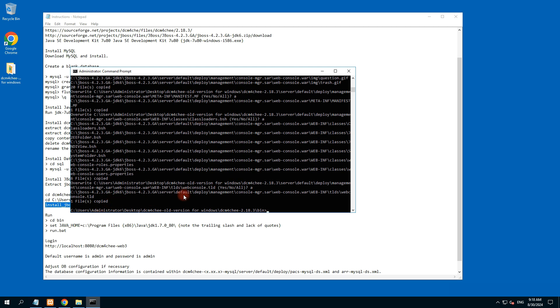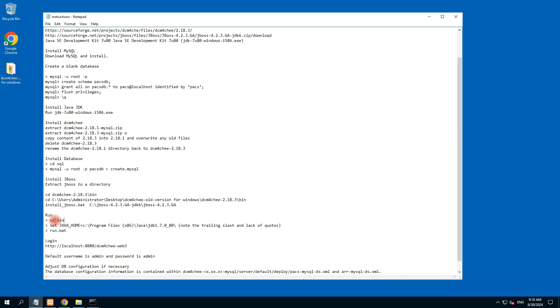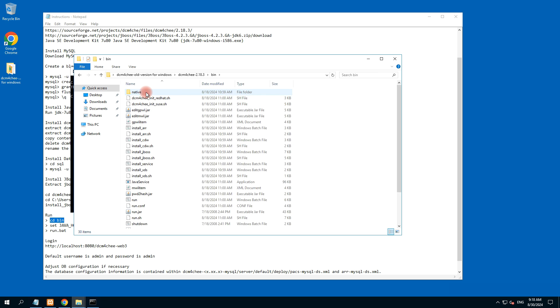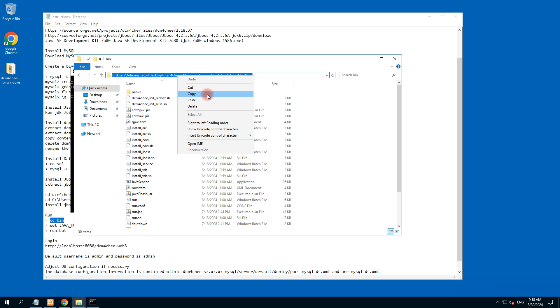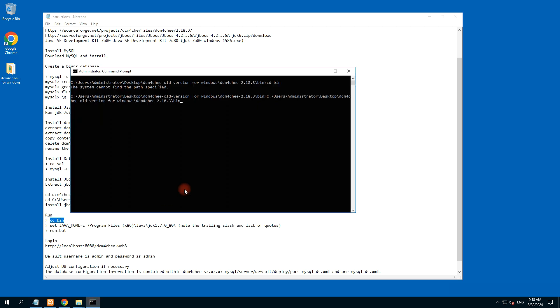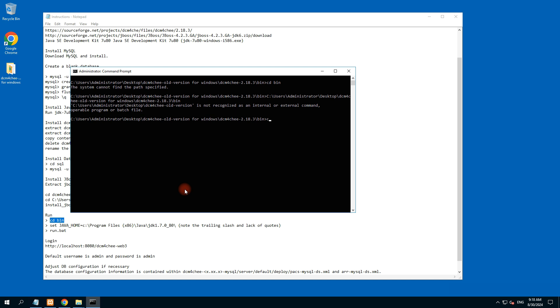All files are now copied. It was giving an error earlier because I had already copied the folder — that's why the error appeared. Just run the install command and automatically all these files will be copied. Now type 'cls', enter, then 'cd bin' — this is the bin directory.